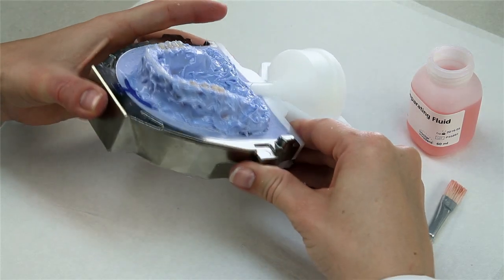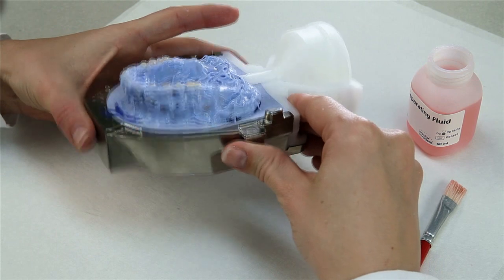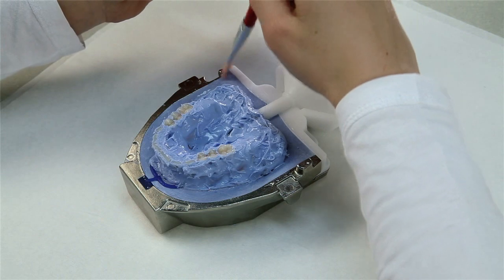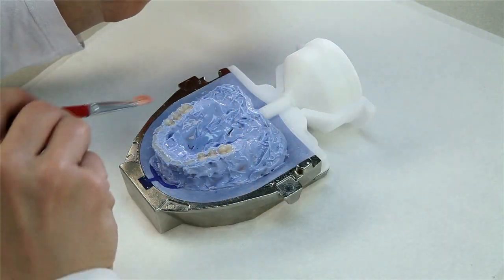After injection, silicone investment protects the teeth during divesting and saves much time during finishing. After that, isolate the stone-to-stone contact surfaces.